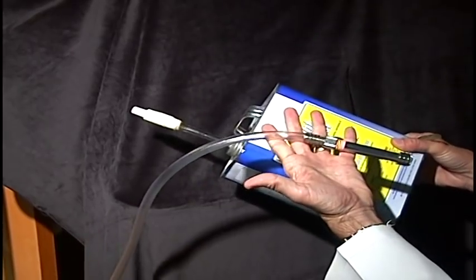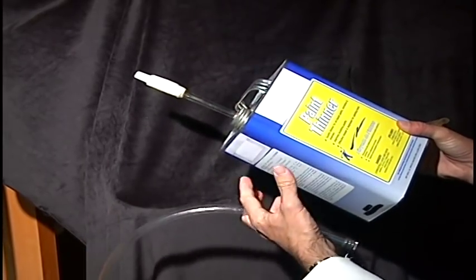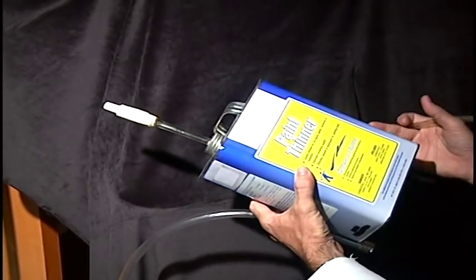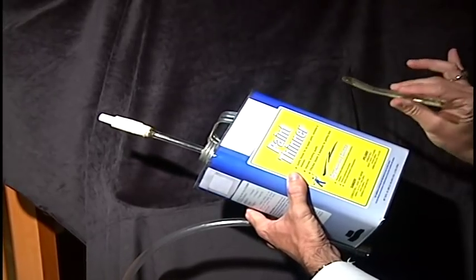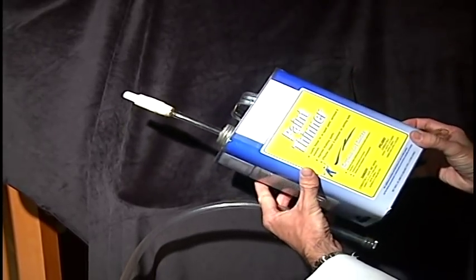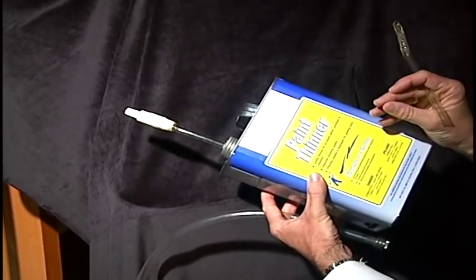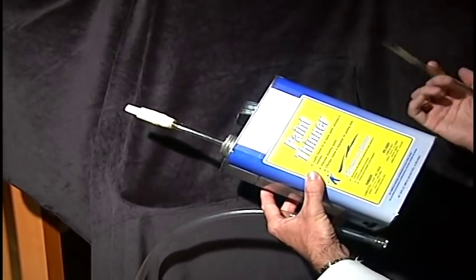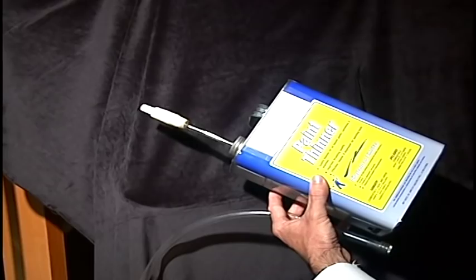Through the suction tubing and then down over to the machine. The suction is also used when a tube like this is placed up into the skull of the baby on the partial birth abortion to collapse the baby's skull. But I'm just going to demonstrate the power of the suction machine to you.